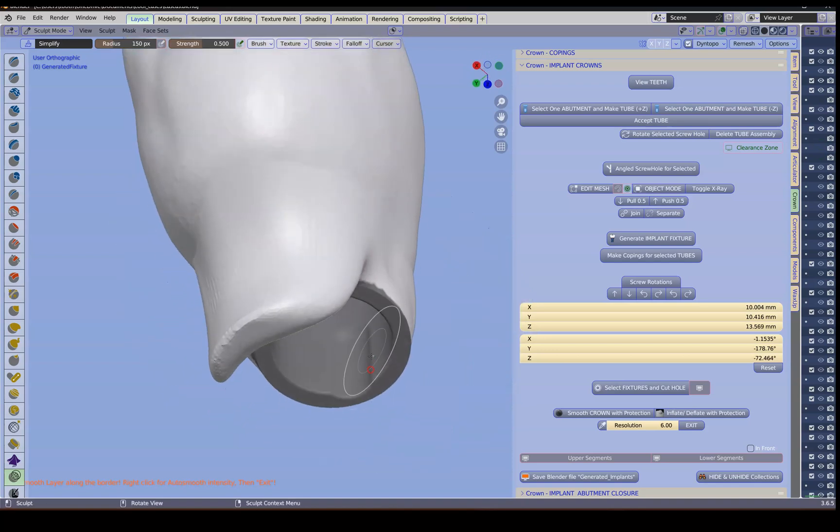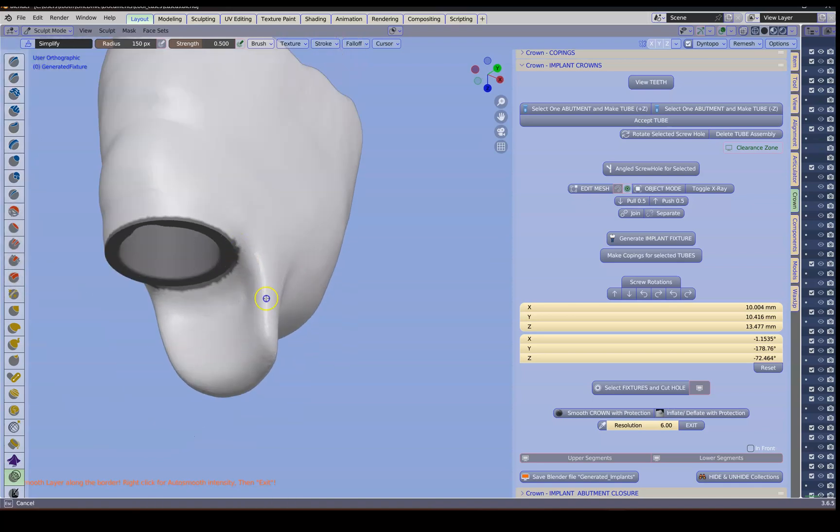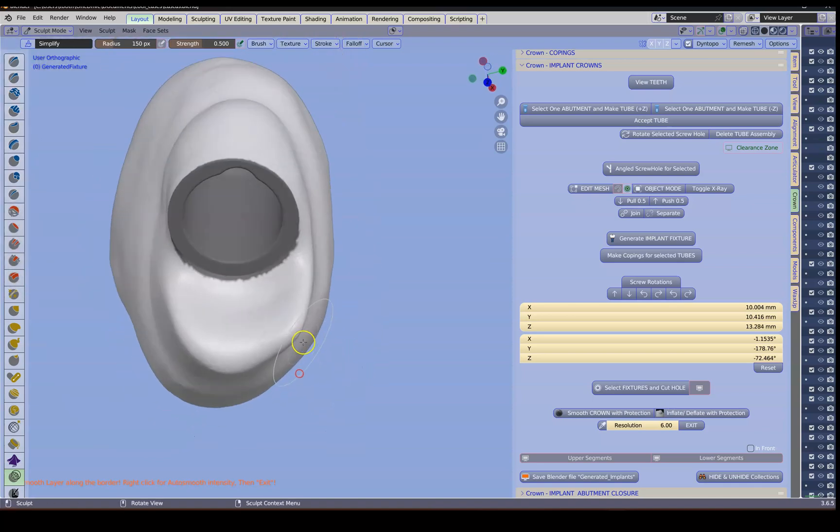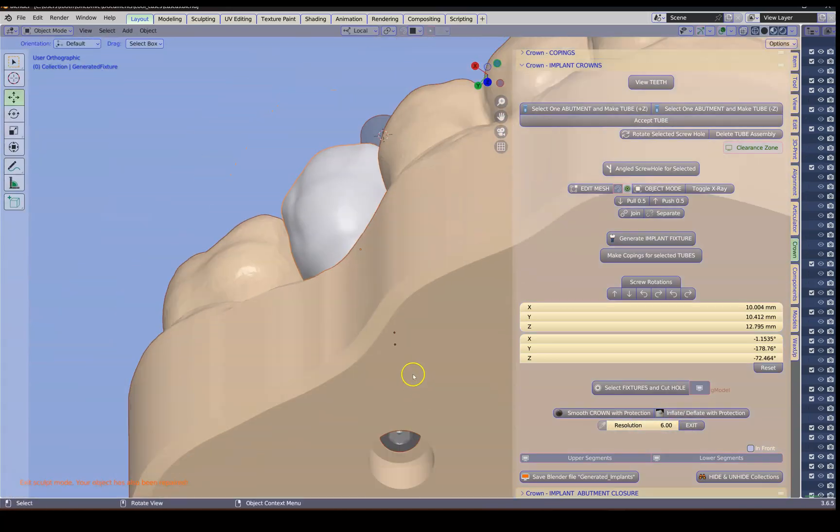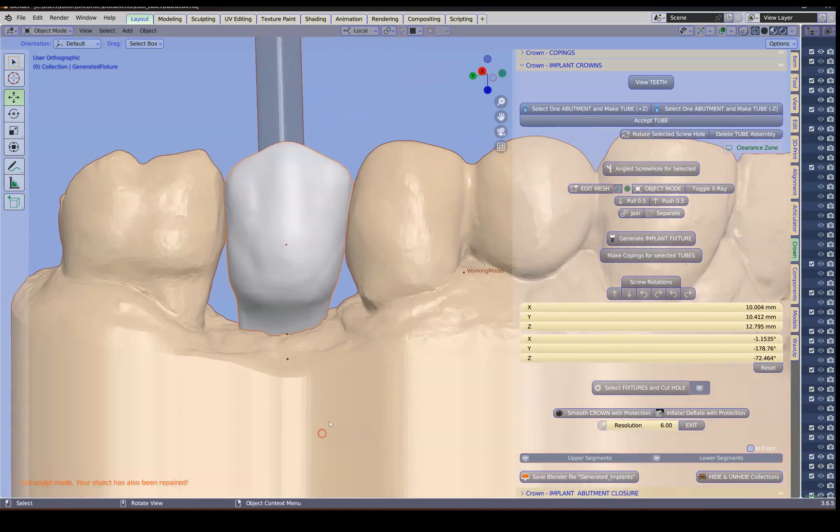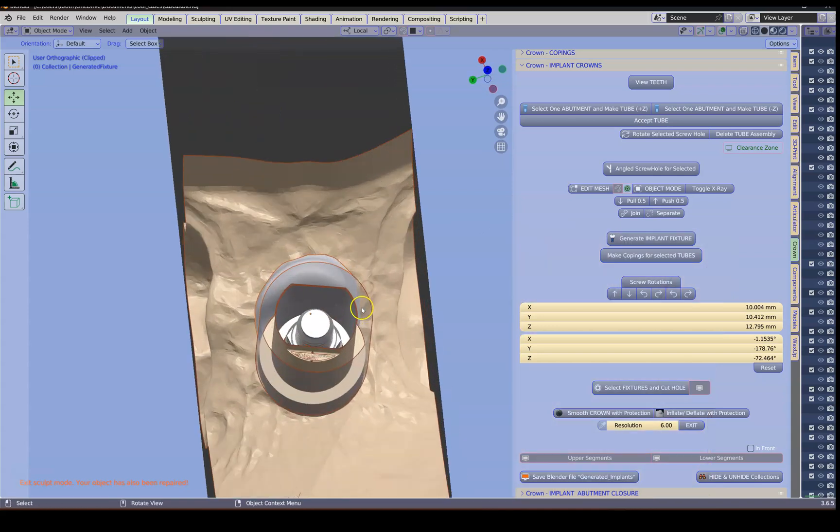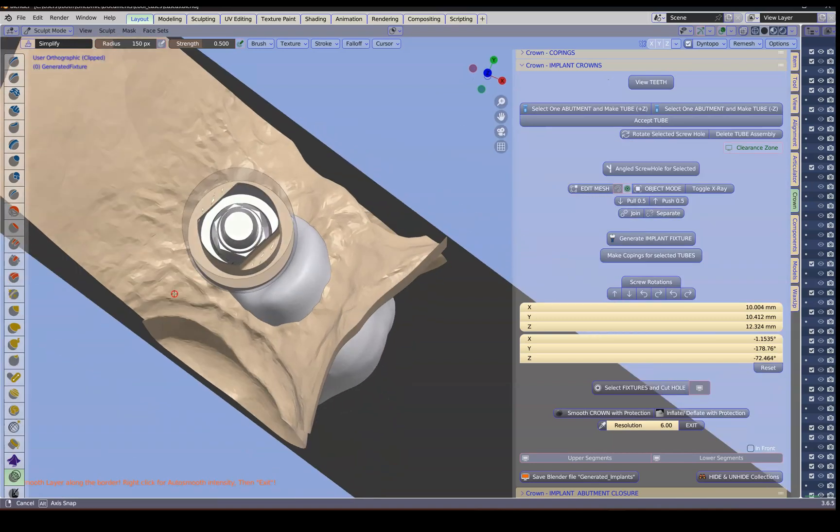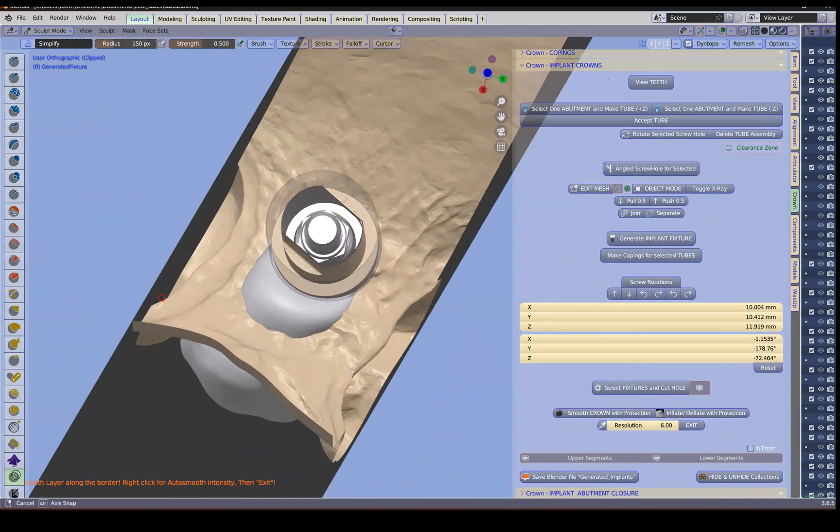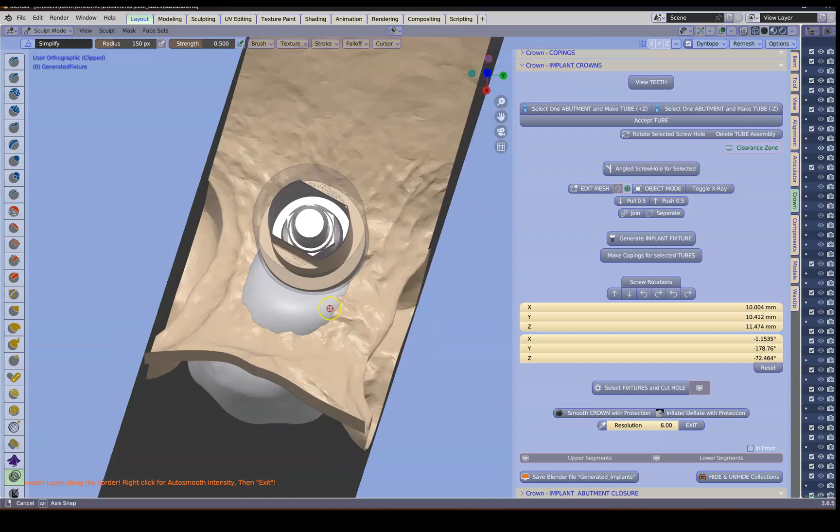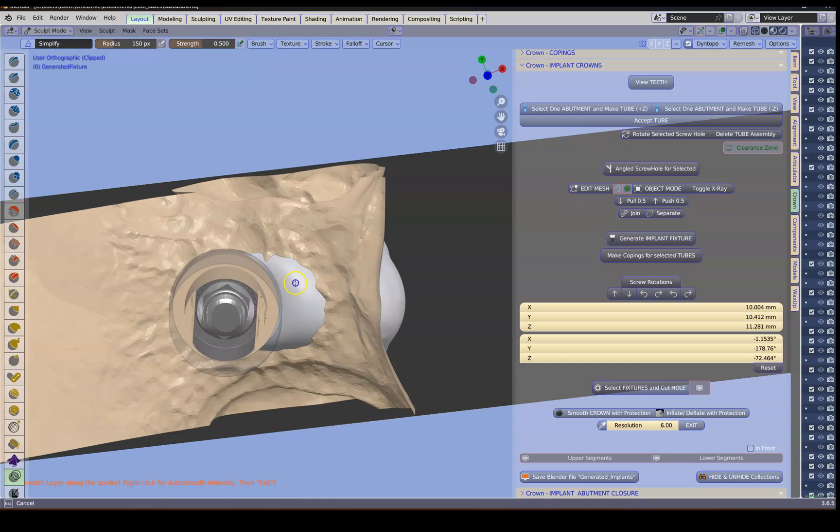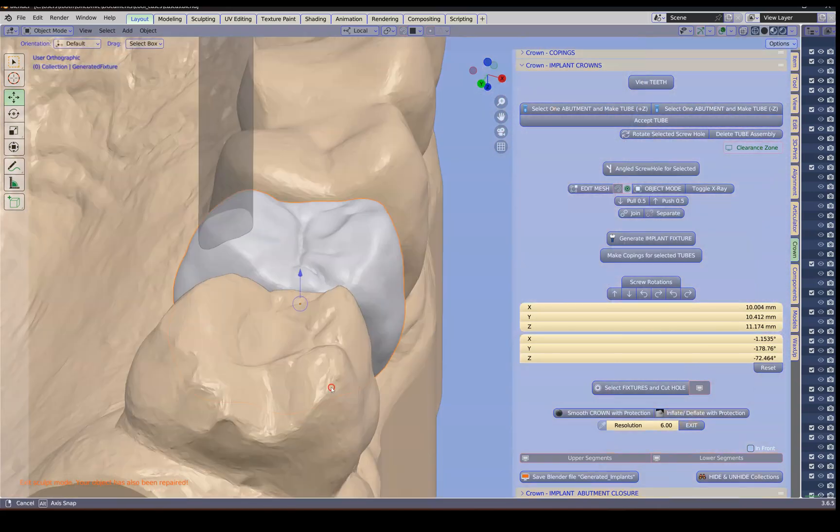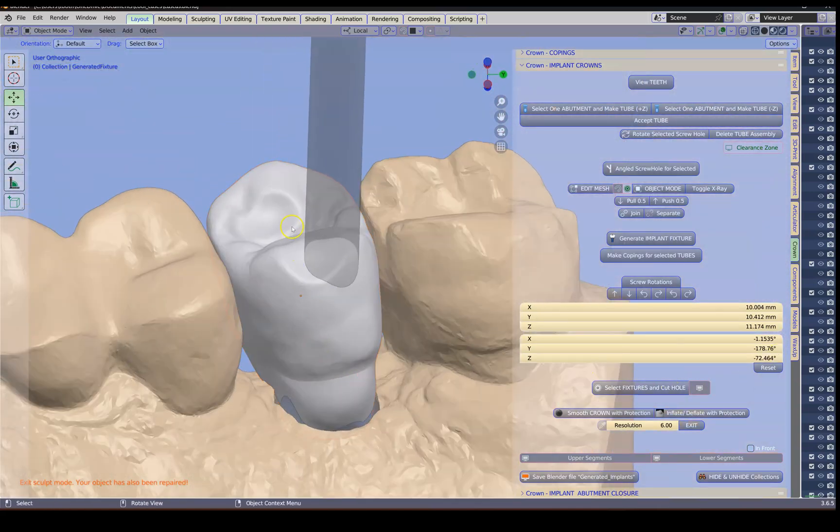So this is quite a bit of an overhang which I don't really like. But if we get rid of all of that aesthetically it's going to look quite a bit different. Of course we'd like to look at the tissue pressure. In Blender using Alt and B on the keyboard, we can actually see a cross section. This is a very powerful tool that we have. Essentially we're seeing on the inside of the model. Perhaps just a little bit of tissue pressure.